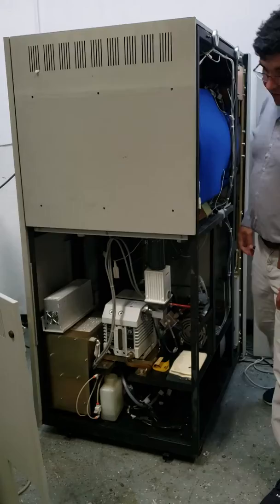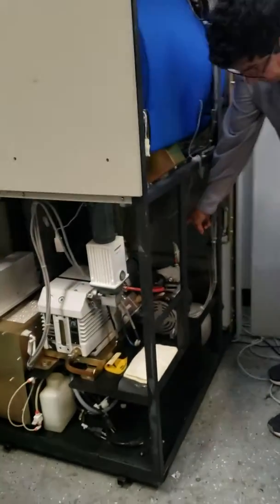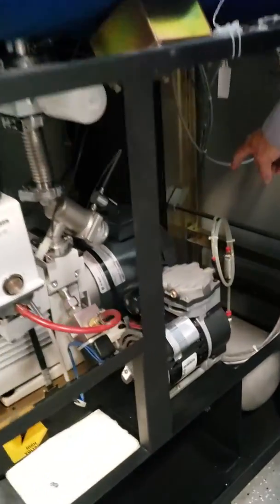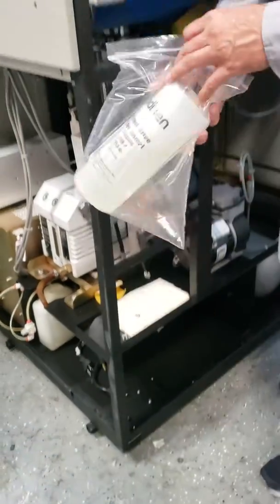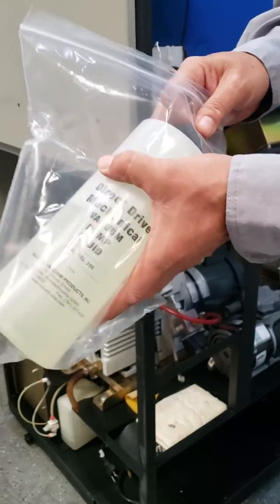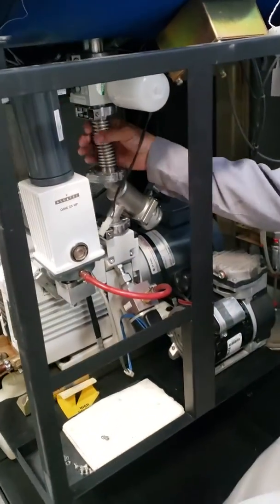Okay, you will find in this area, in the front of the sterilizer, you will find two boxes. One of the boxes has oil, the other has this part, that is the hose.